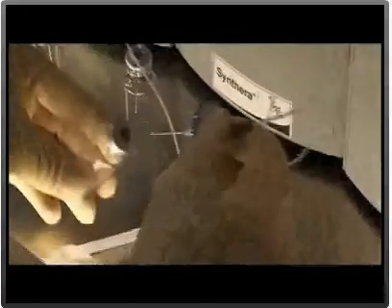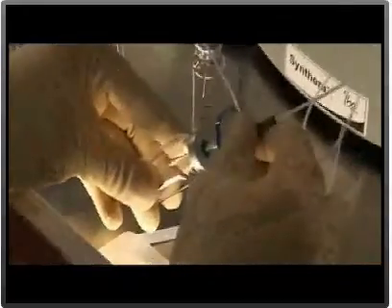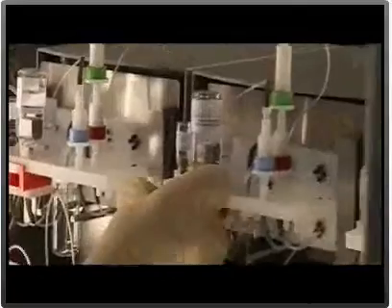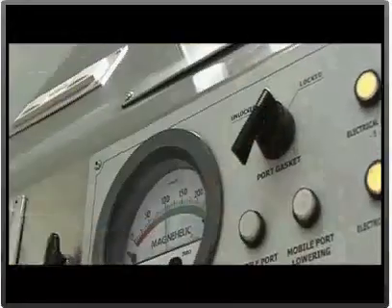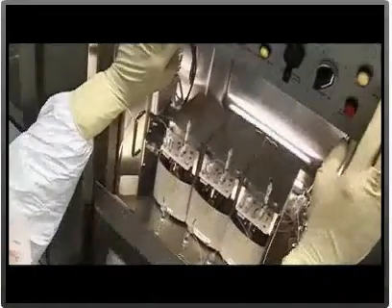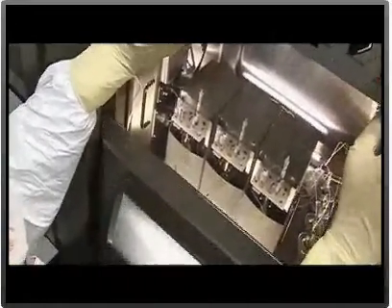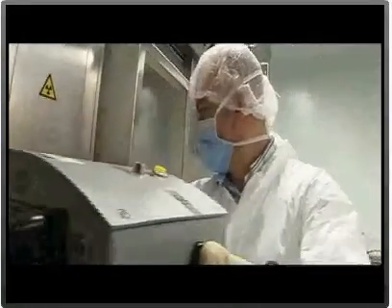To ensure that the team are able to overcome any incident on the chemistry module, additional modules are in place and available for backup purposes. Should one module fail, the Fluor18 flow can be easily redirected to the backup module, so that production and delivery schedule is not affected.